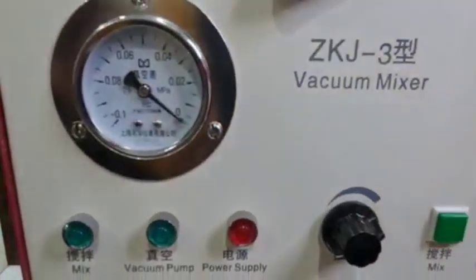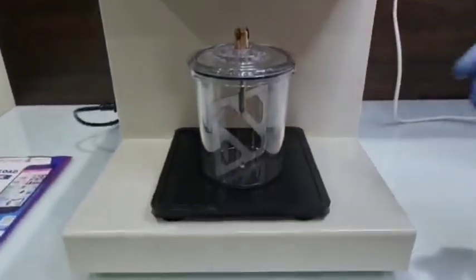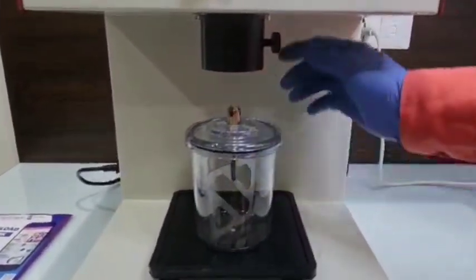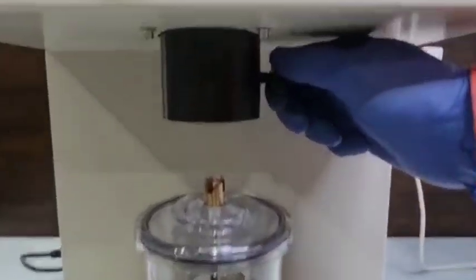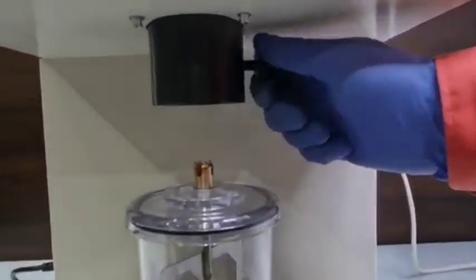There is a controller and you can see how the machine is working and at what pressure. Underneath the machine, you can see there is a heavy jar which is used for mixing, and there is a vibrator underneath. This is the vacuum release knob which helps to release the vacuum — it will help to stick the jar onto the top.